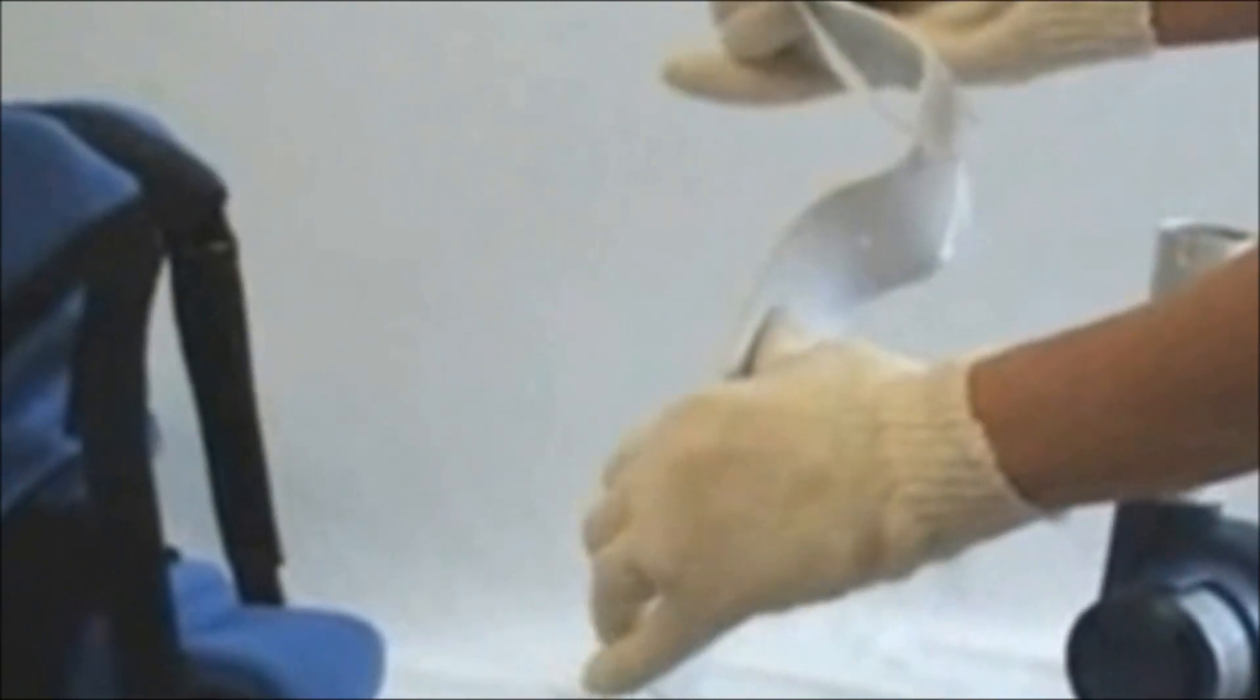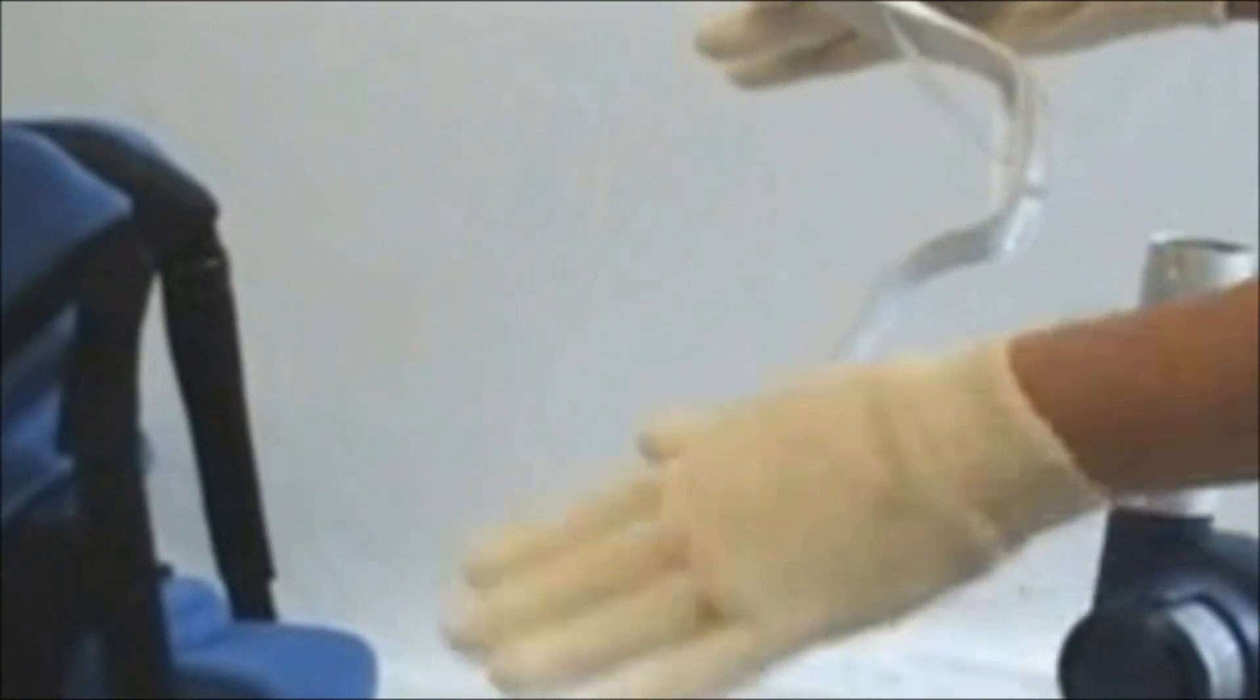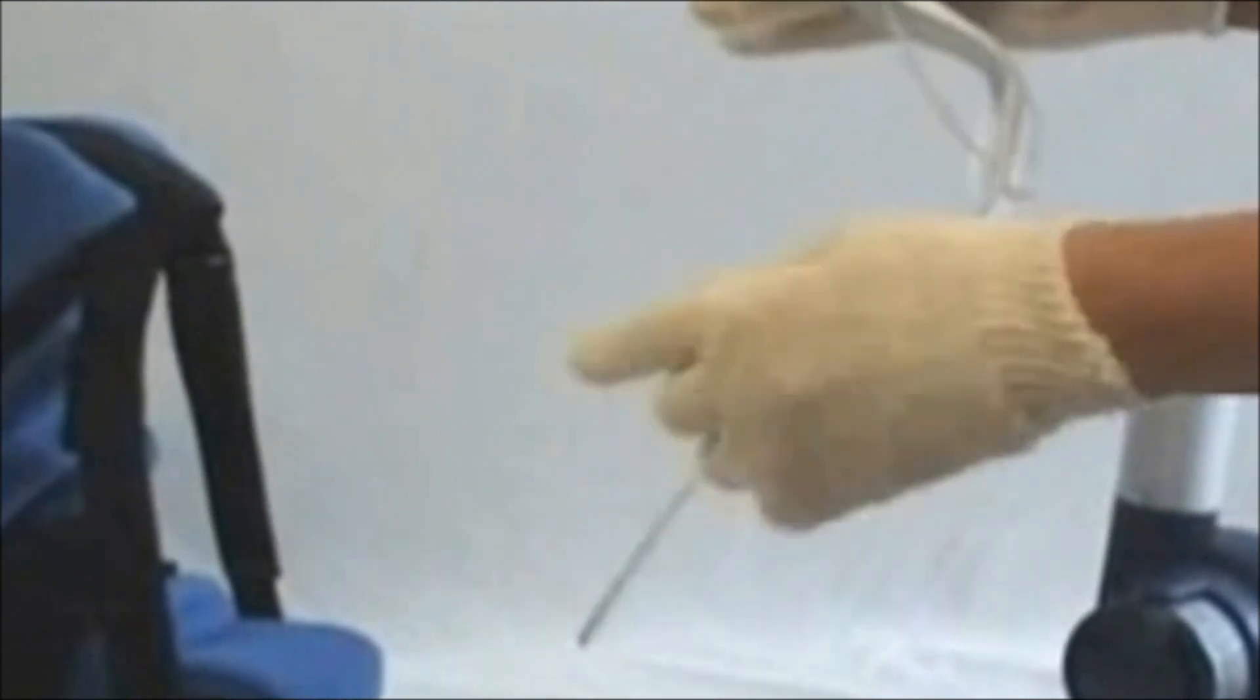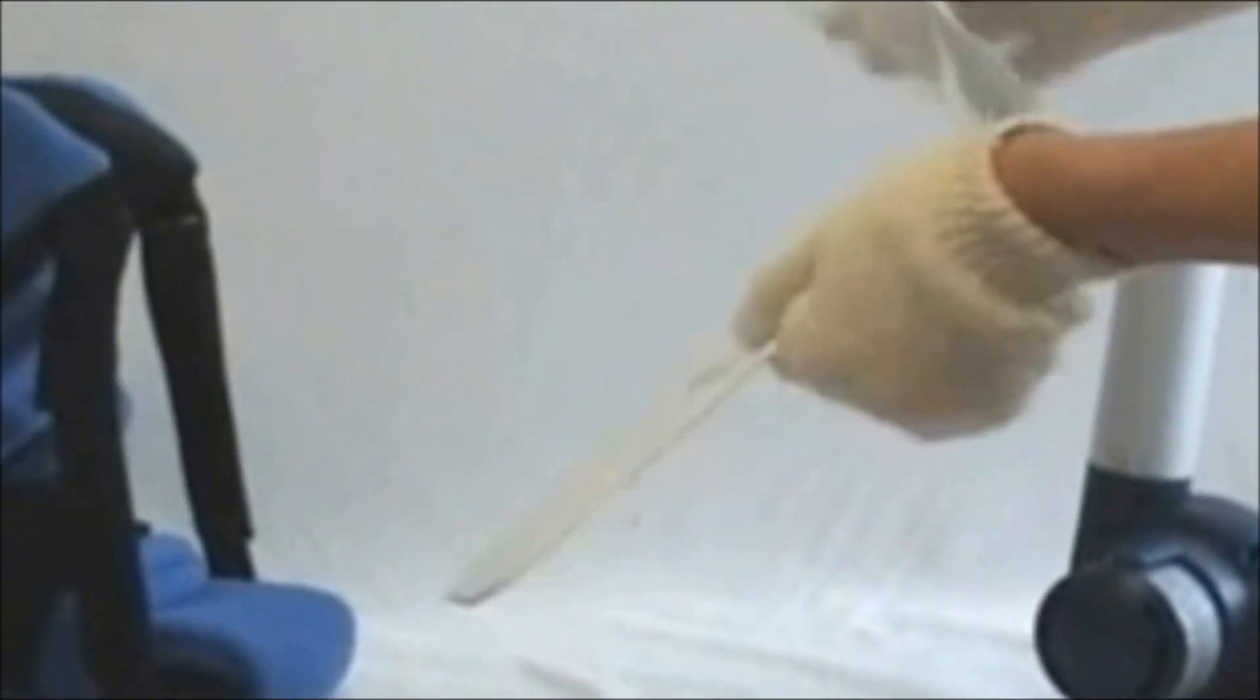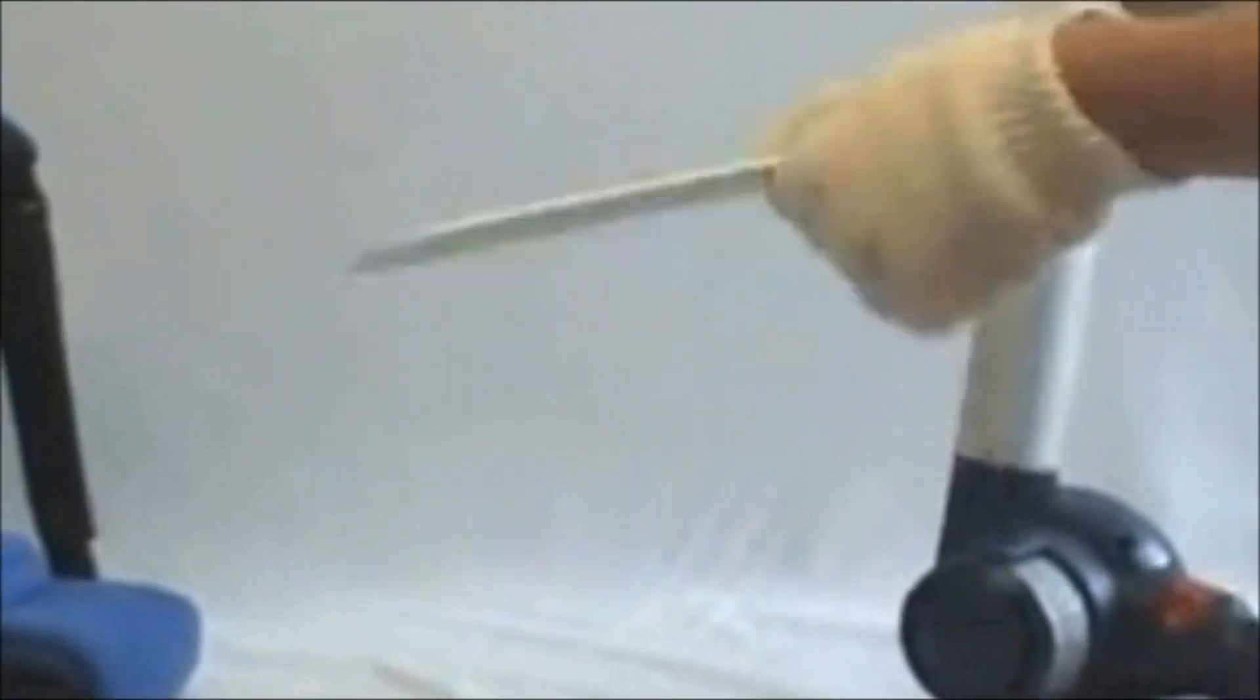Do not change the shape of the heel itself. This is a suspending heel. If you have inversion or eversion, you're going to remold it to meet that curvature also. Otherwise, your foot will slip inside the boot padding. It sets you up for shearing, and it's not a true restorative action.